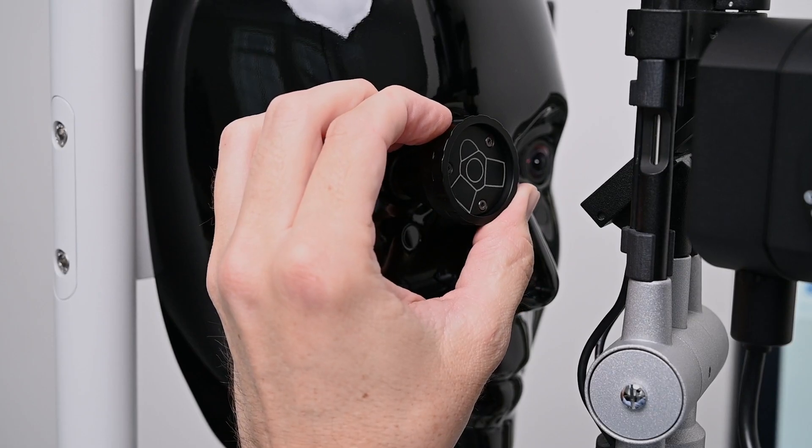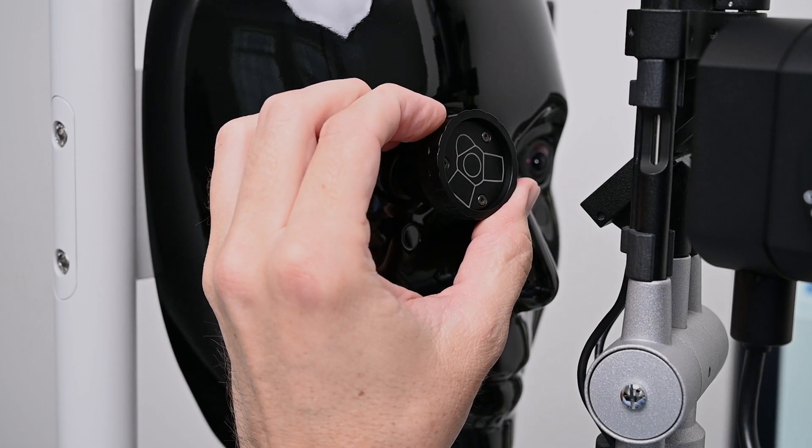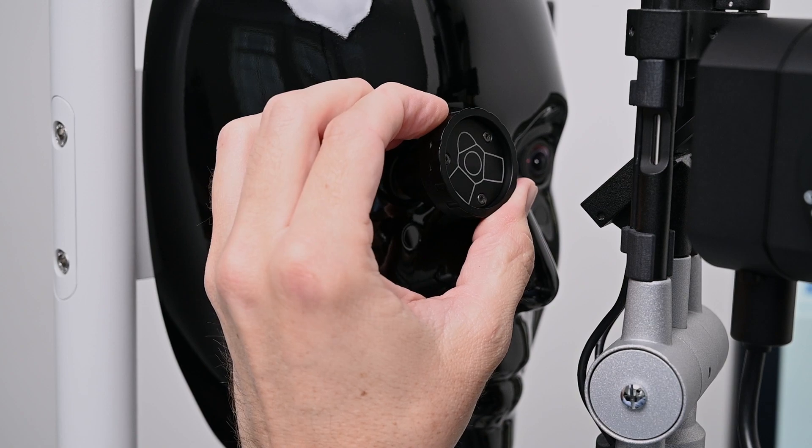An indirect gonioscopy lens mimic allows for virtual examinations of the anterior chamber angle. By visualizing the chamber angle anatomy accurately, the training system practices the correct classification of glaucoma.